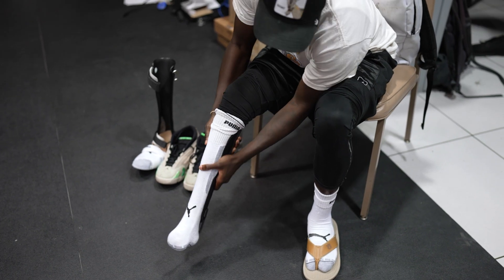It was something where she was like, I don't know how to do this, so I'm asking you to figure it out. And so I spent a while going through different forums and help pages of SOLIDWORKS to try and figure out a solution of how I can make a custom orthotic. The extra effort we put into making this a robust design to be used with anything was able to so easily convert over to what Key needed.